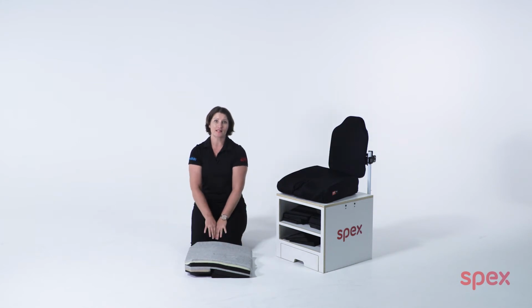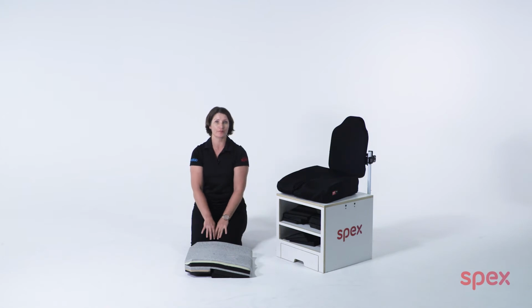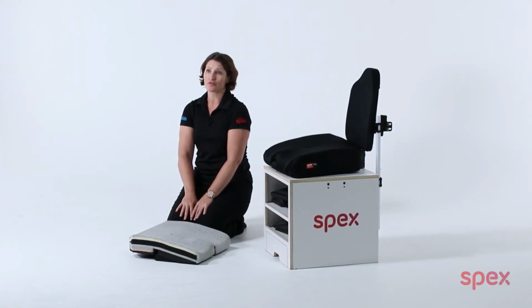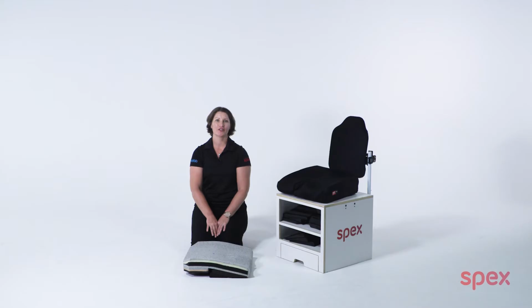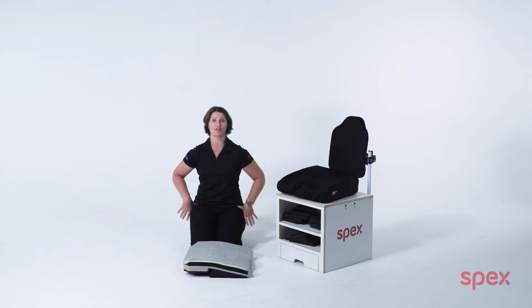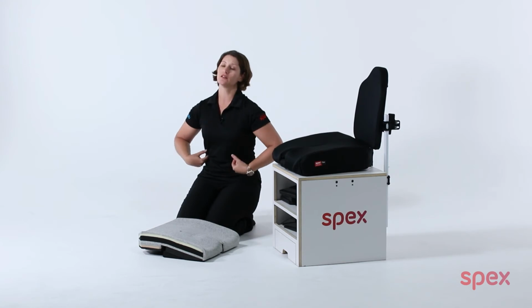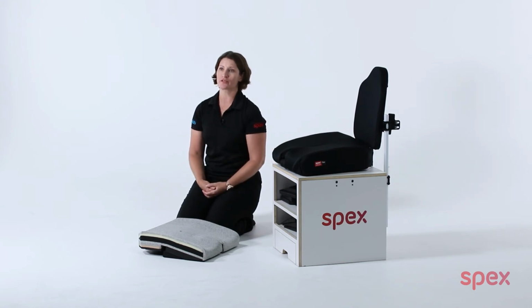This simply means that sitting and maintaining contact and support along the full length of the pelvis and the back of each of the thighs on the primary support surface is possible. This means it also allows for improved upper body alignment and functioning. You can see that not accommodating non-correctable hip flexion limitations will result in rotation of the pelvis, obliquity where one side of the pelvis is lifted in comparison to the other, and this in turn will cause twisting in the trunk and spine and therefore contribute towards a scoliosis.